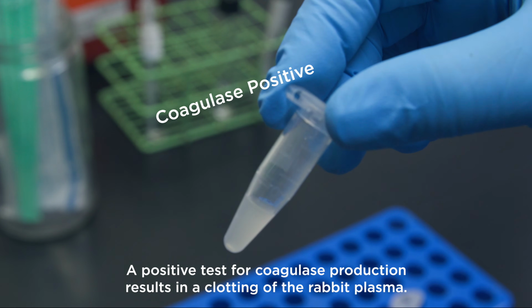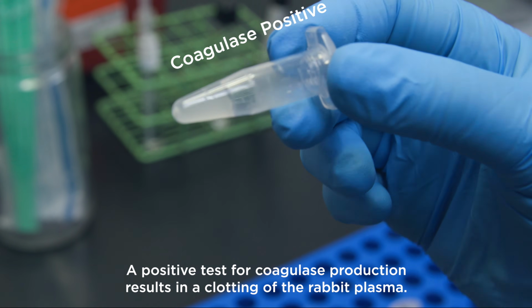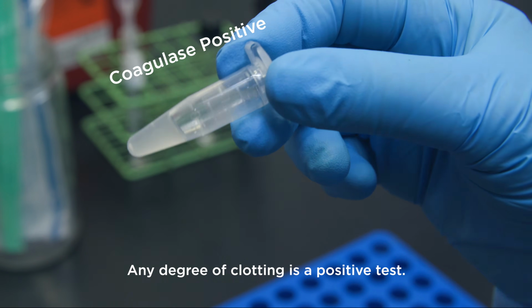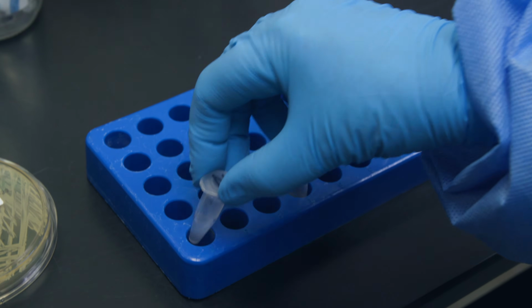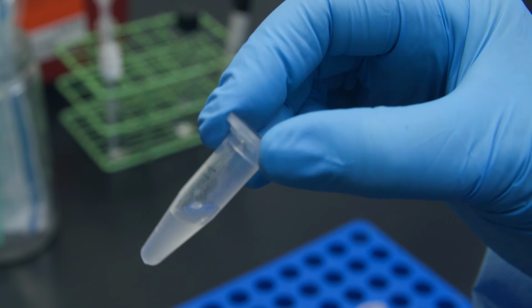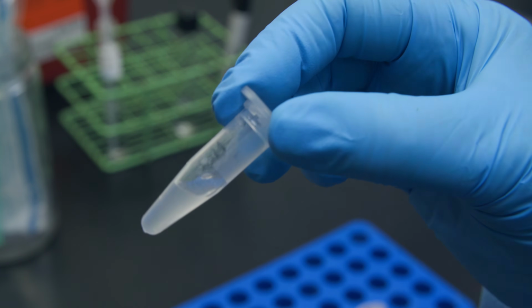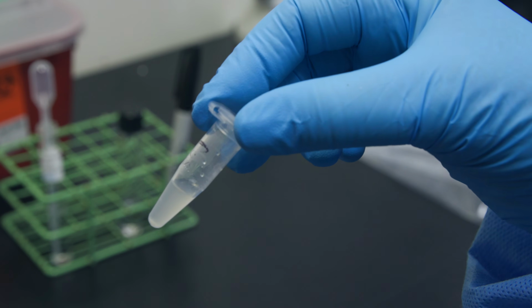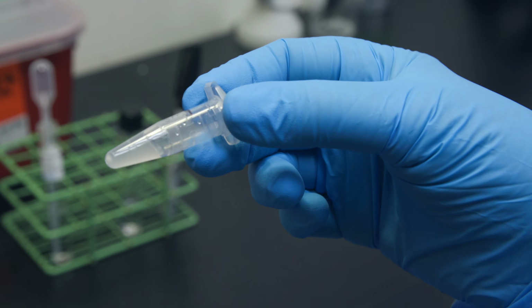A positive test for coagulase production results in the clotting of the rabbit plasma. Any degree of clotting is a positive test. All negative results after 4 hours should be held at room temperature for a total of 24 hours incubation. Please refer to the instructions for use for the Coagulase Plasma for more complete information.